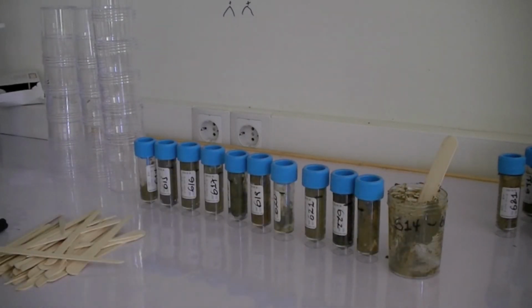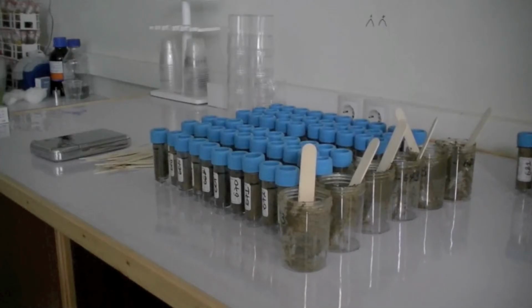Next, repeat the preceding procedures for the 5 remaining rows to obtain 6 pools of 10 individual samples. Finally, each of these pools can now be processed with a diagnostic method.